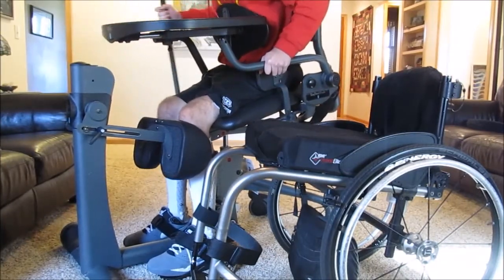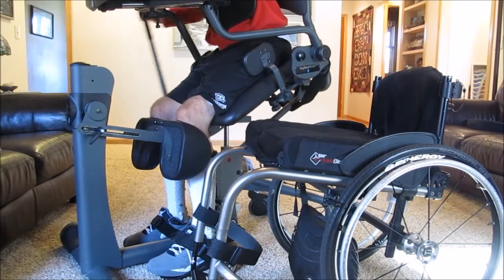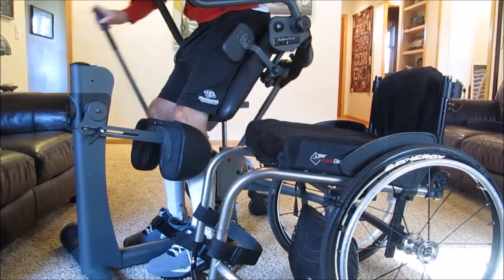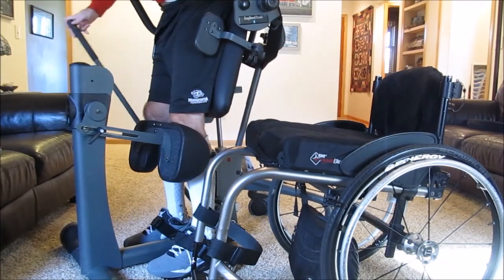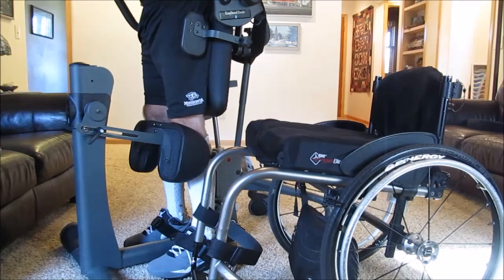Right now I'm just using this lever to crank myself up. It's perfect to have this tray up here because I can either do homework, draw, eat dinner — a lot of fun things. Although I can be upright with the exoskeleton and walk around, this allows me to have a table and I don't have to really worry about my balance as much because I can put my hands and arms up freely. This piece up here is snug against my abdominal area.